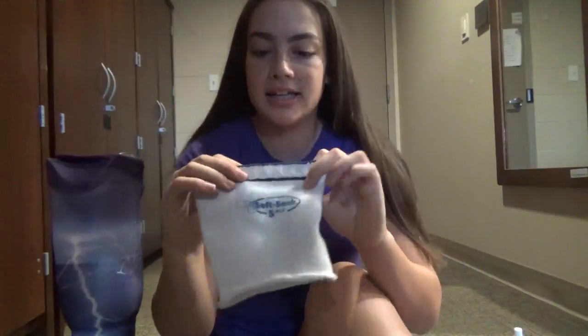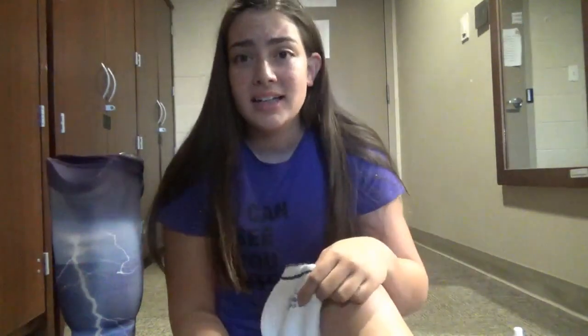So, handy-dandy stump socks. Each sock is a different ply worth — it goes one, three, or five. At least, those are the ones that I have. Five is blue, green is three, and I have a gray one which is one. Right now, with how much space I have, it's honestly a guessing game. I know I need at least five because it was an entire hand — that's a considerable amount. I'll start with eight. If it fits, great; if not, I'll go down.